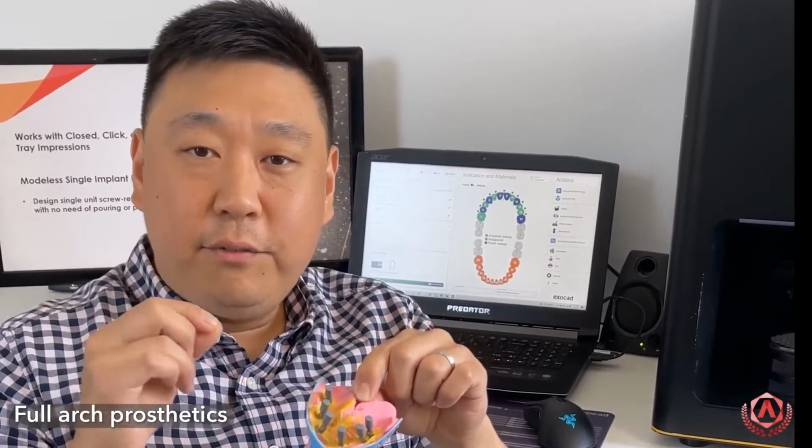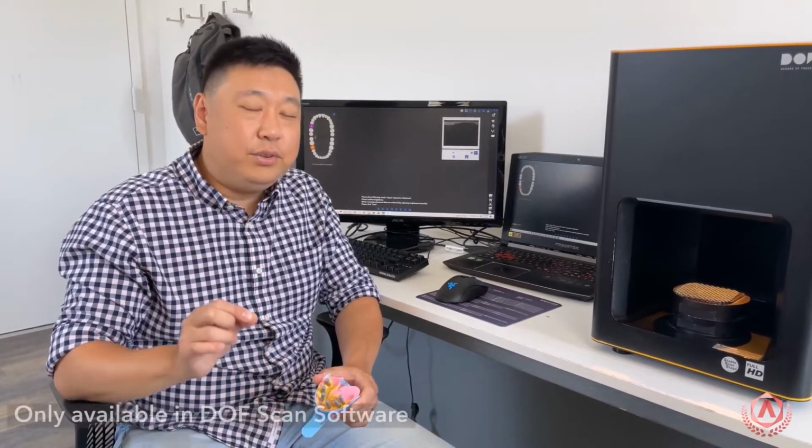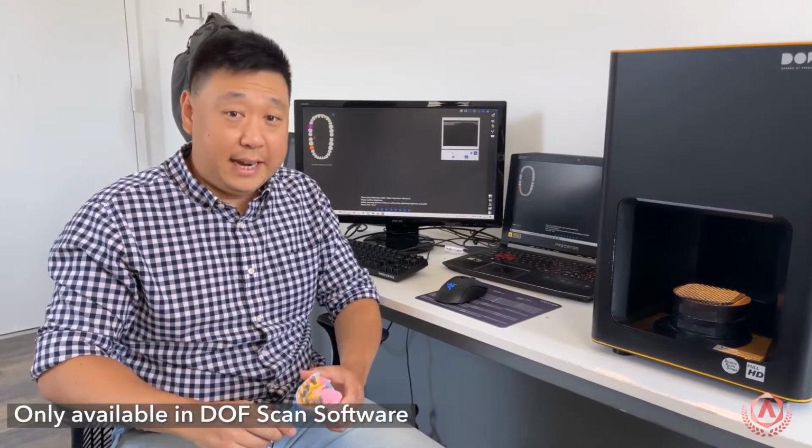One of your last benefits for today, at least, is full arch prosthetics, as you can see from this impression itself. Now, do keep in mind that currently, for an automated scanning process, this is only going to be available through DOF Scan App software.